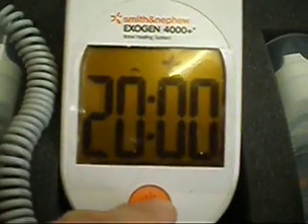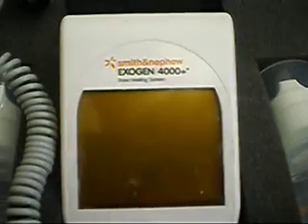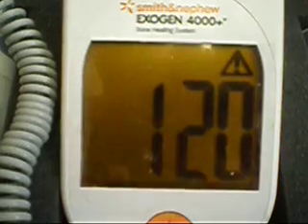We're going to turn it back off here. And if you noticed on the screen — I'll show you one more time — the initial number that said 120 is the number of cycles this machine has been used.